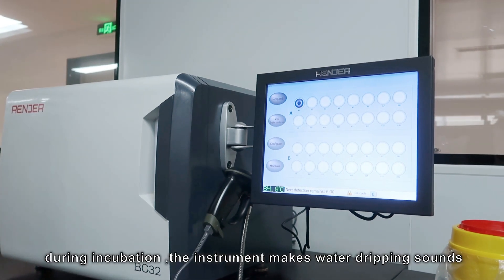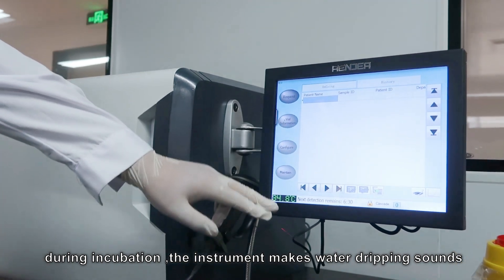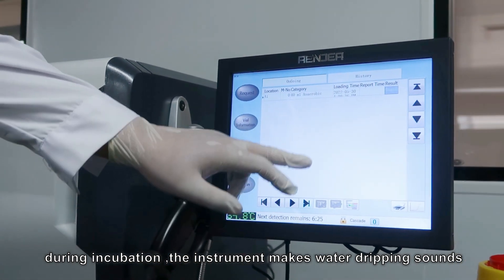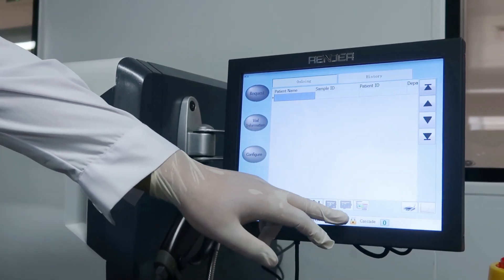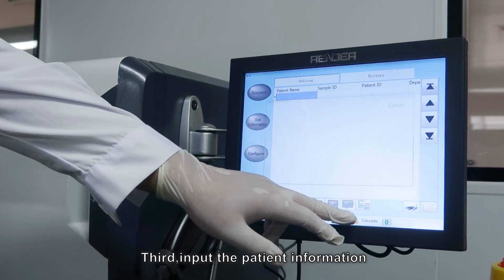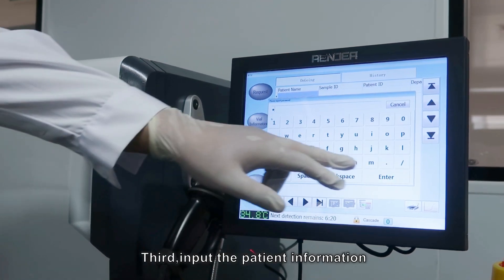During incubation, the instrument makes water dripping sounds. Third, input patient information.